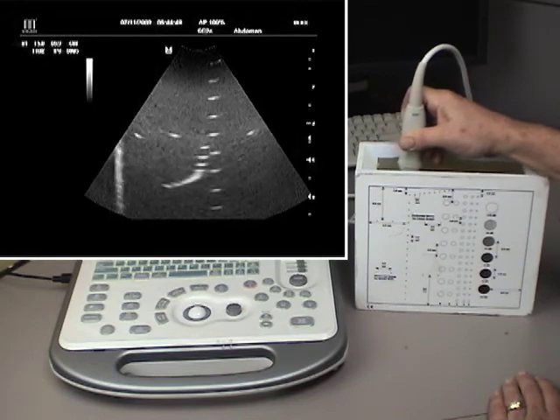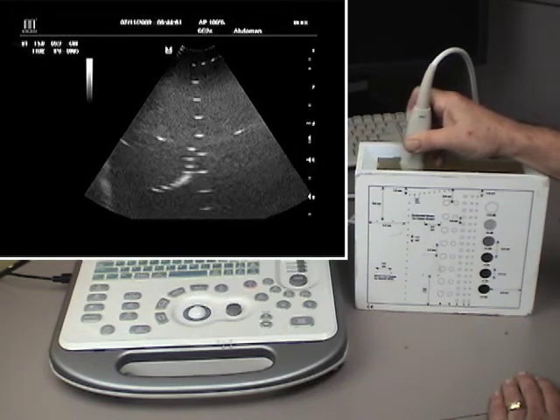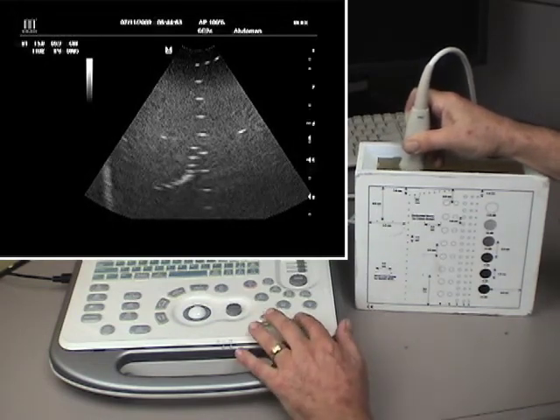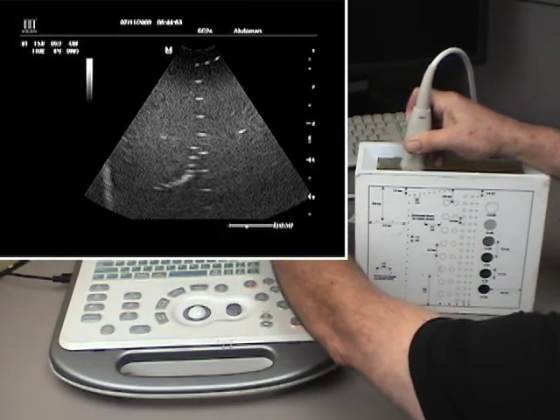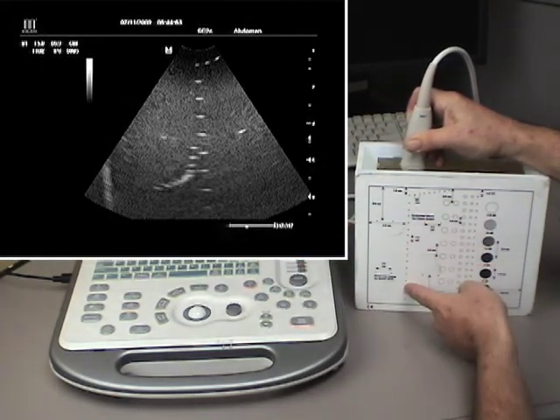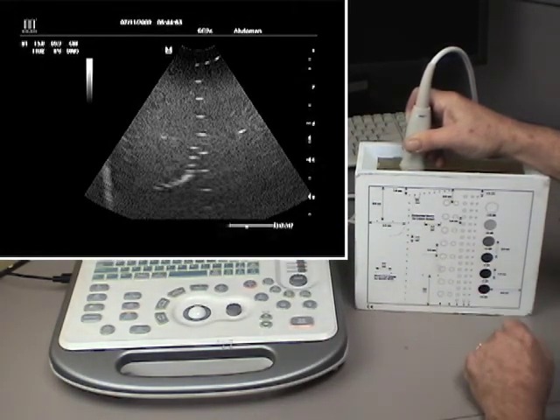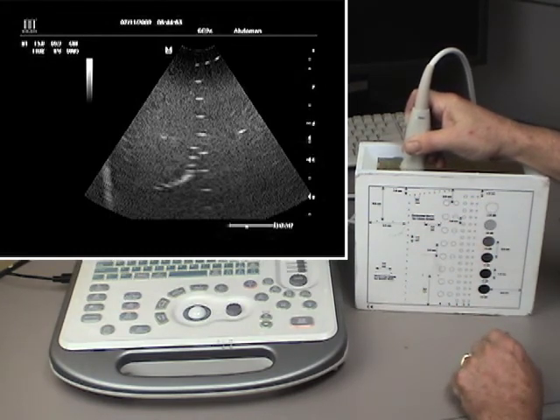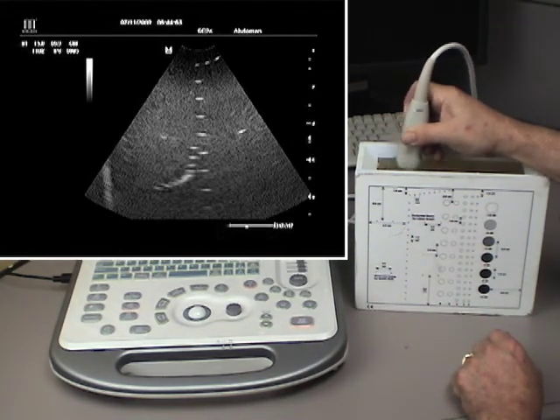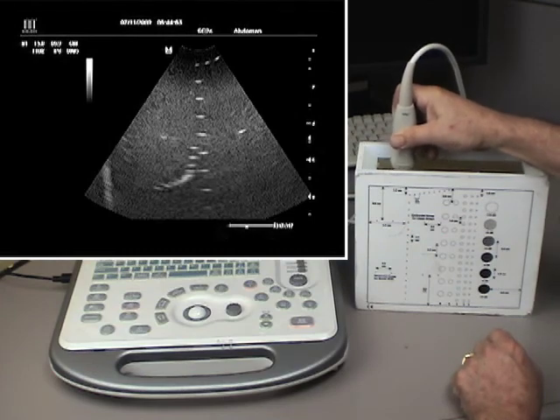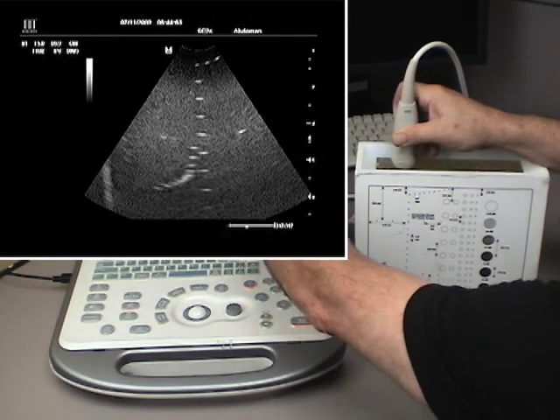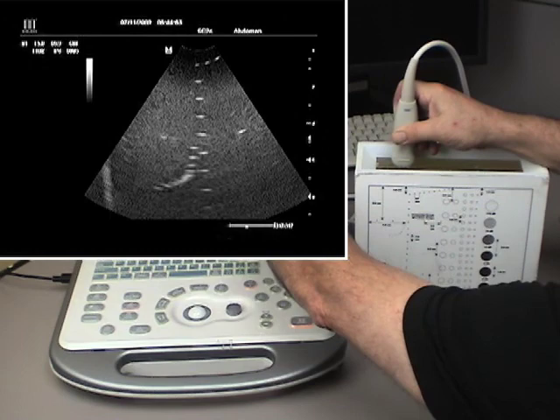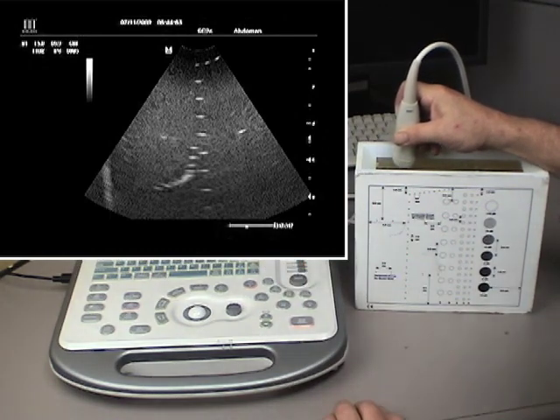For axial and lateral measurements, we'll do right here, let me freeze, looking at the lines down here, or matching up the lines coming down here. They're one centimeter apart, and they start at a fixed distance from the surface. That changes a little bit. As you push up and down here, that'll move. So typically what you'll want to do is not measure from the surface, but measure between a series of dots on here.